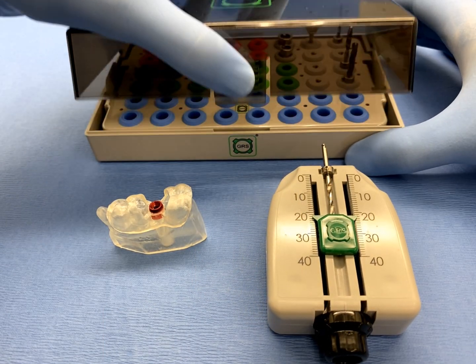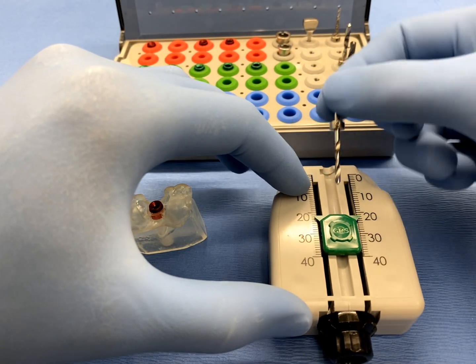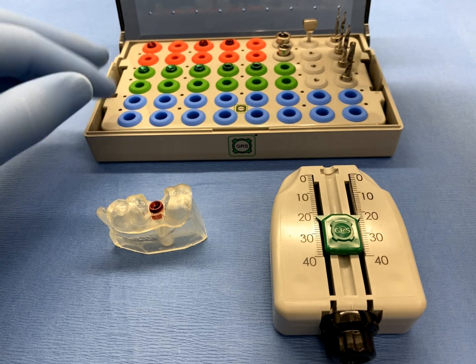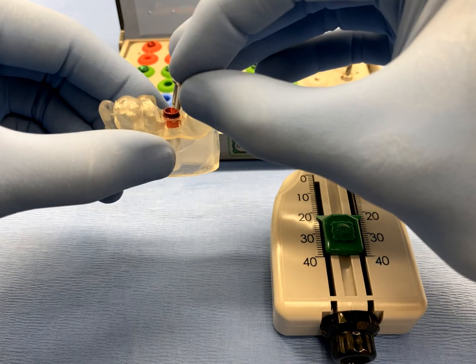Once completed, place all drills with the affixed drill stops, GRS drill sleeves, and IR tools into the GRS surgical cassette and sterilize according to current infection control guidelines.